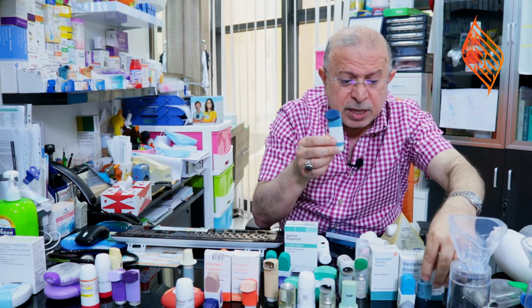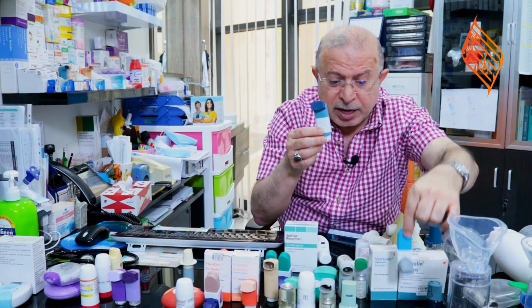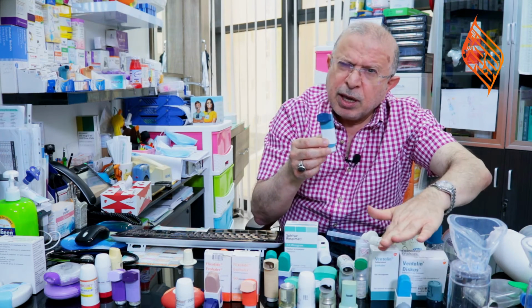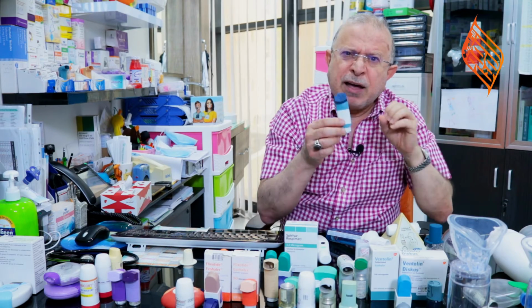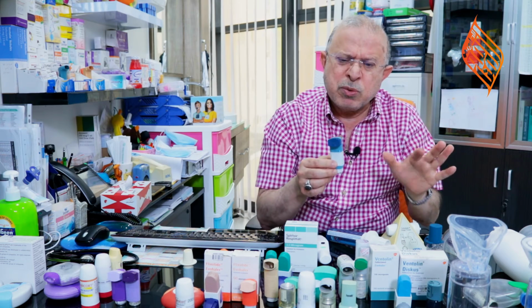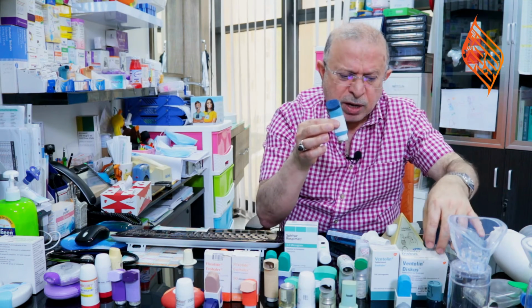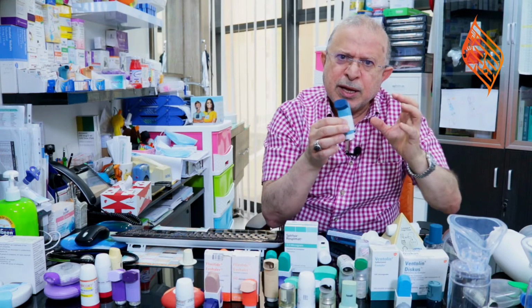We had in the past the Rotahaler, and we had the Easyhaler in the past. Nowadays, you may find them in certain countries, but the commonest available ones in most of the countries around the world are the Evohalers and the Diskus. I will show you later on how to use them separately.